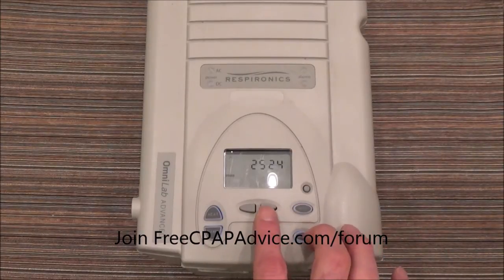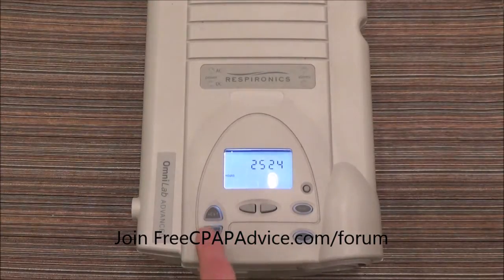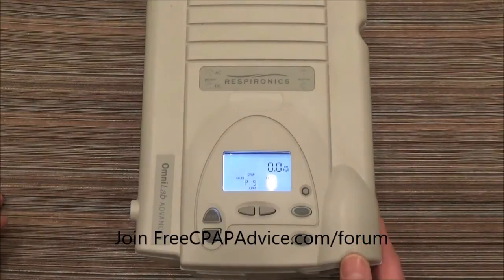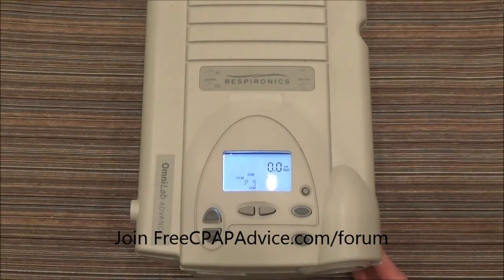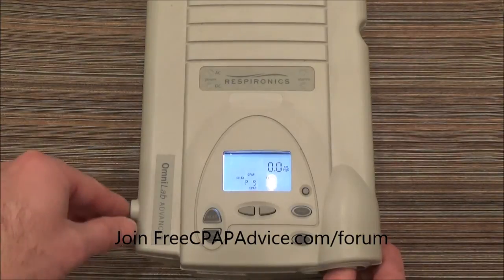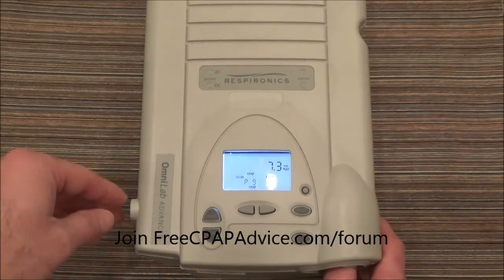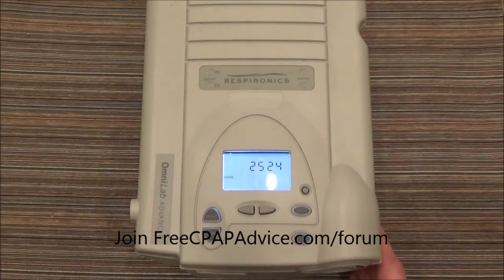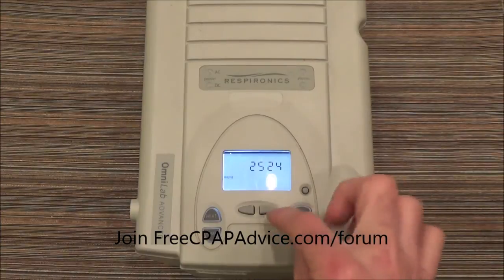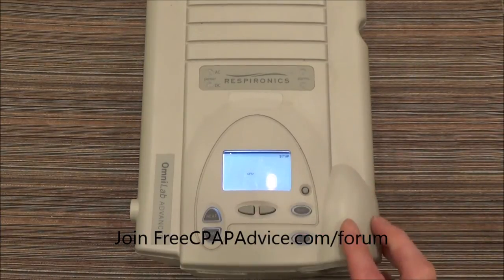So to access the clinician's menu — right now it does nothing. You can see when I turn it on it's set on nine centimeters of water pressure, just straight CPAP. We want to turn that off, and to access it we're going to push on the right arrow and the silence button. Just push and hold for about three seconds or less.